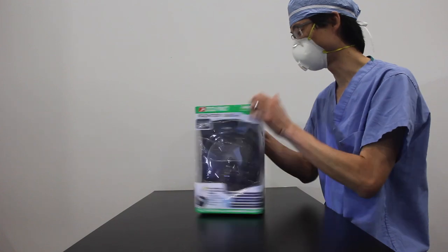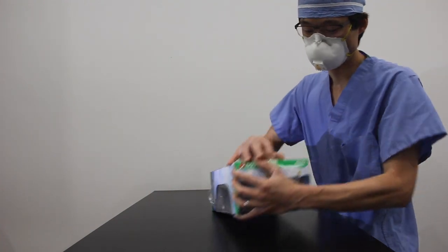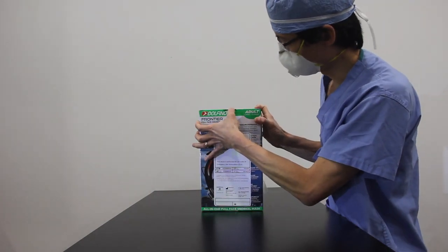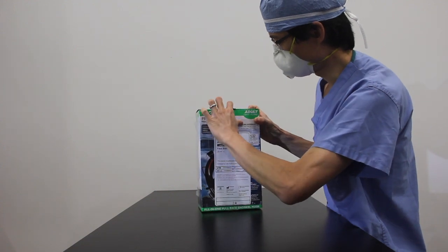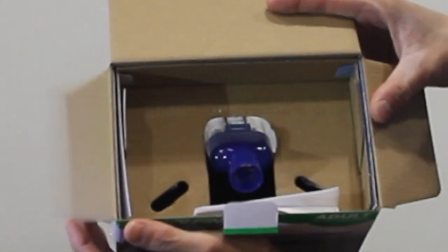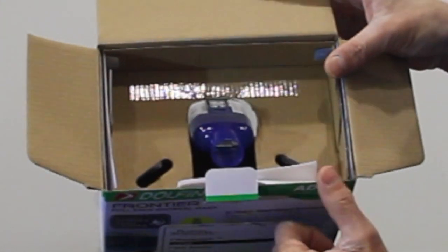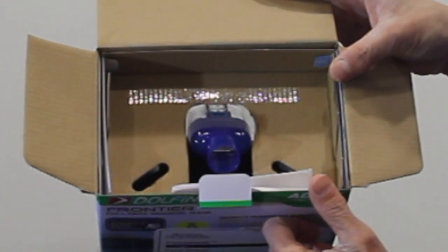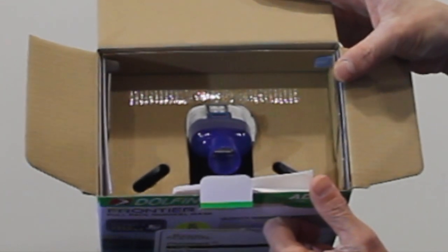Let's get cracking. Let's open it up. It's got this little tape here, kind of replacing the old plastic tape that was in the original mask. Open it up and what do we got here? Oh look, you can see this nice blue injection molded filter adapter.